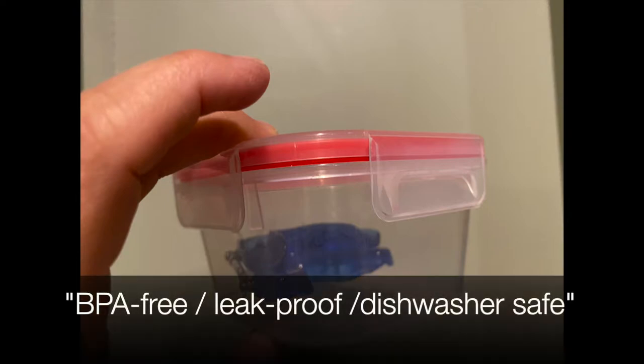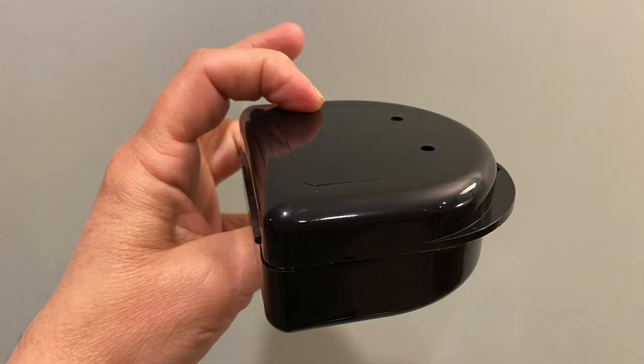Finally, a lot of patients use Tupperware. This is a safe plastic — the description says you can dishwash it as well. It's a sealing container, watertight with a strap and clasps, and the device definitely fits in there. I found this to be the best after going through a lot of different sizes. It comes in a two-pack so you can use the other for food. It's basically a food container, so it's very safe for the oral appliance.